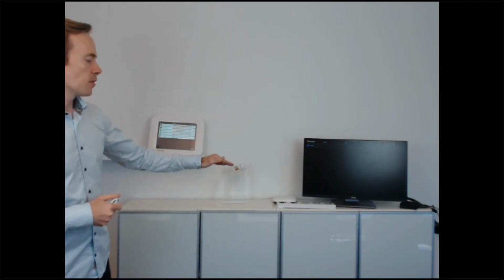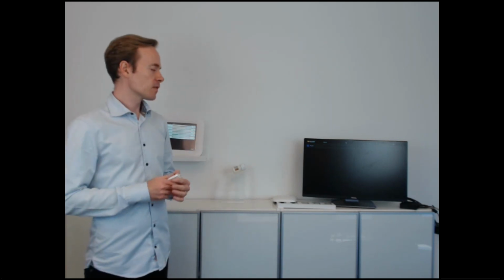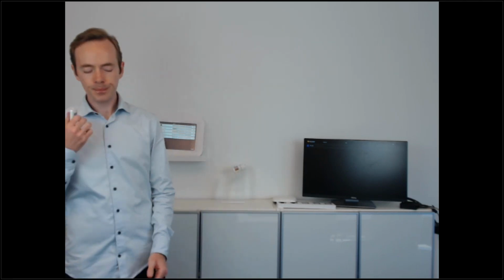In addition, it also stores dose per hour, and it has space for dose per hour measurements for continuous use up to 5 years. So 2 memories there: dose per second, 3,600 samples, and dose per hour up to 5 years. The hub or the display stores the same things. It makes the same distinction, but it has space for all the dose per second measurements up to more than 10 years for dose per second and dose per hour. And it also gives you various ways to compound that into dose per day, etc.